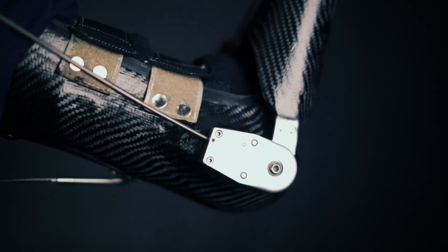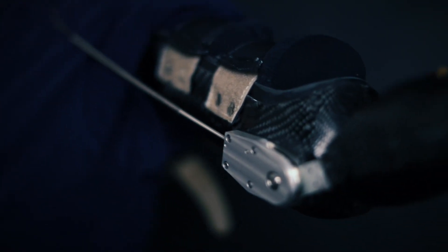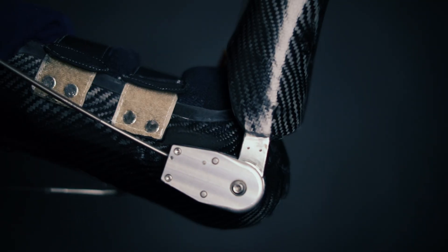The second function is the elbow mechanism. This works pretty simply off a cog mechanism in which another cable runs from the top of my shoulder into the elbow unit. That cable connects to a locking mechanism within the elbow unit.